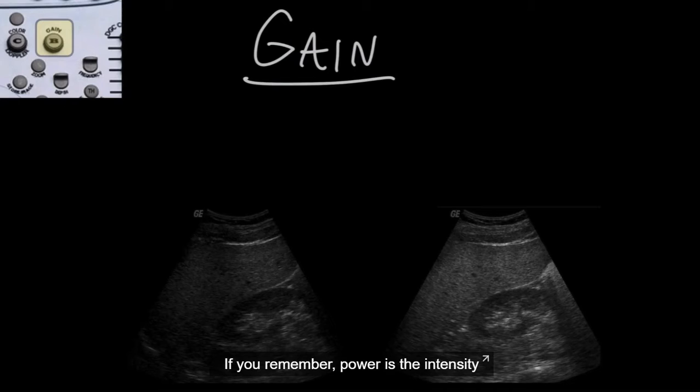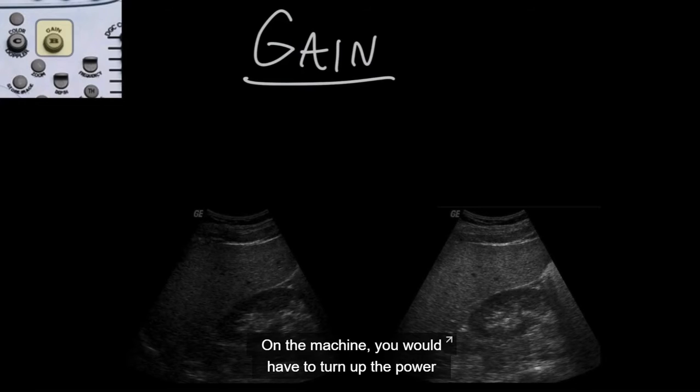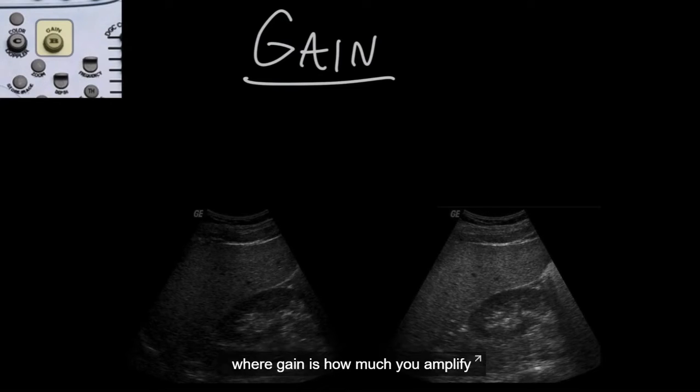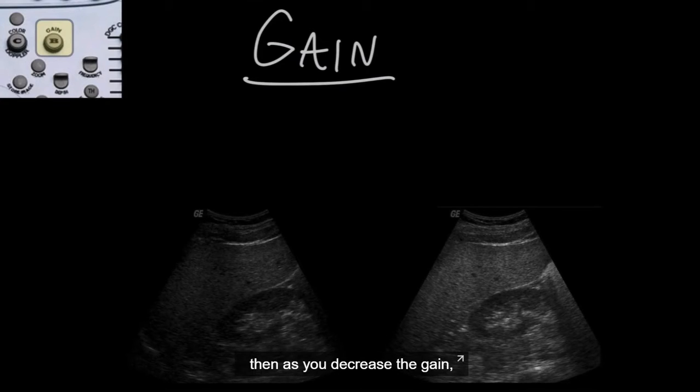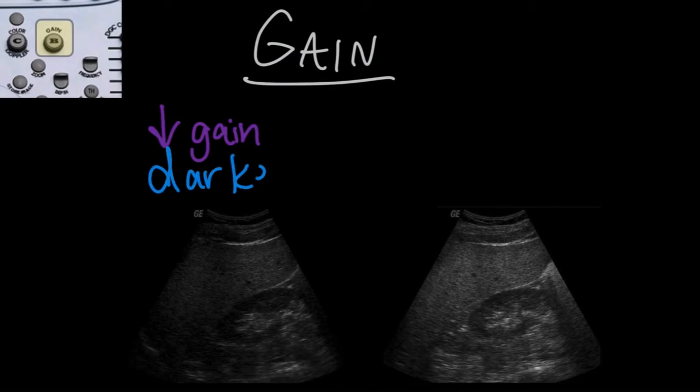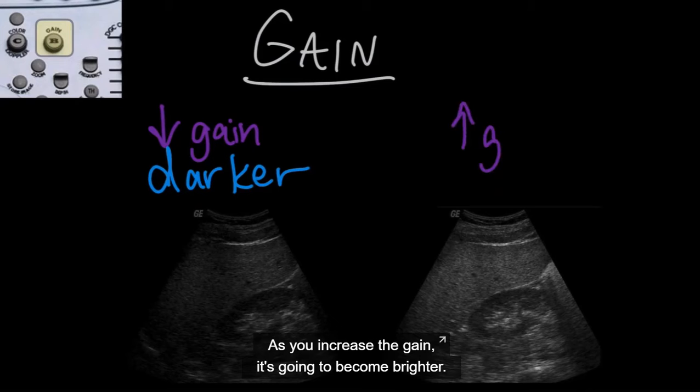If you remember, power is the intensity of the ultrasound beam sent out from the machine and transducer. On the machine, you would have to turn up the power to increase the intensity of the beam sent out, where gain is how much you amplify the intensity of the signal coming back to the machine. Now, in ultrasound, if you think of volume as brightness, then as you decrease the gain, it's going to become darker. As you increase the gain, it's going to become brighter.